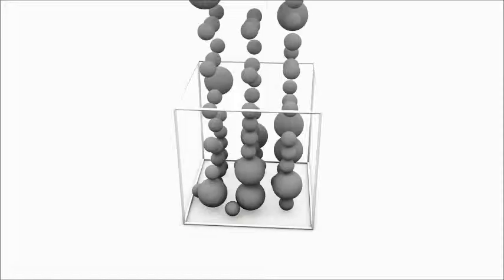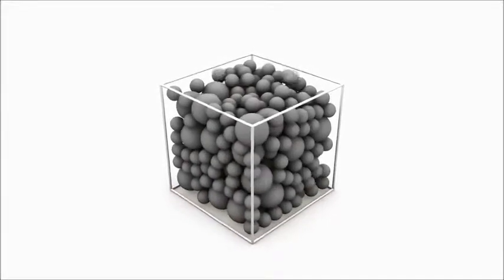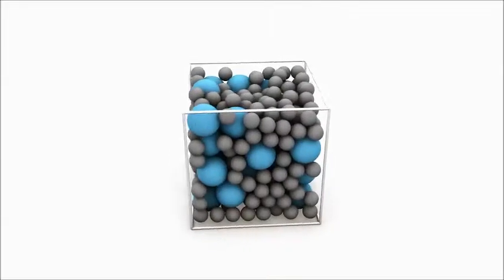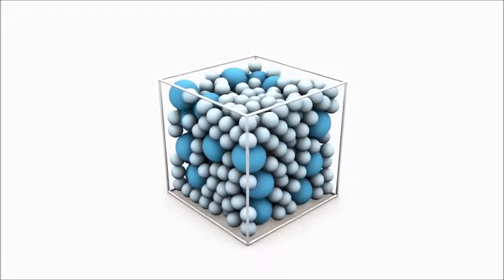Like in this model, contemporary dental composites contain at least two types of fillers in different size categories. Packed larger particles greater than one micrometer form a grid, and submicron particles occupy the space in between for maximum filler loading and composite strength.